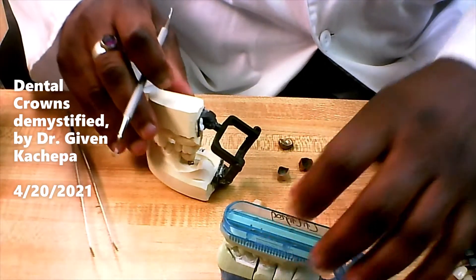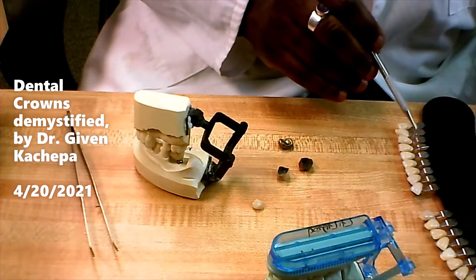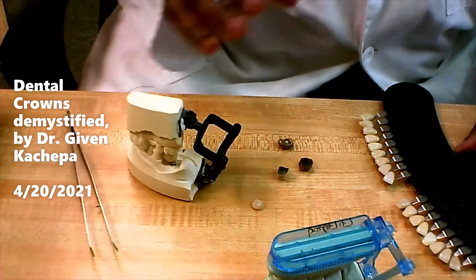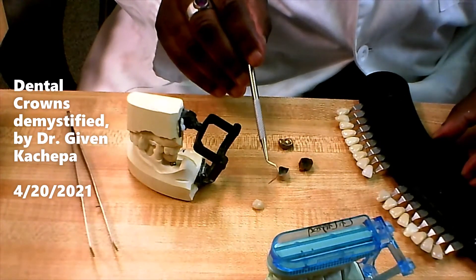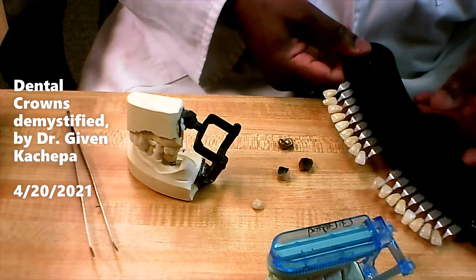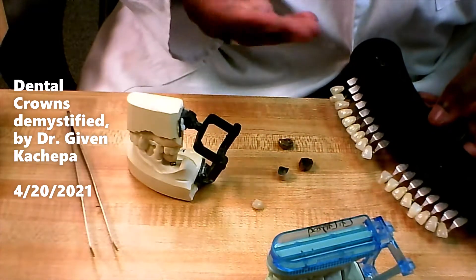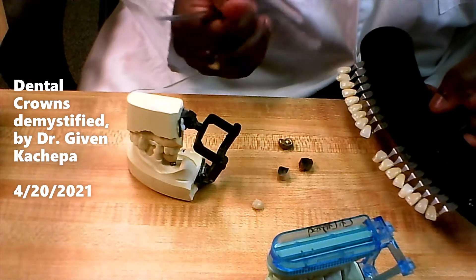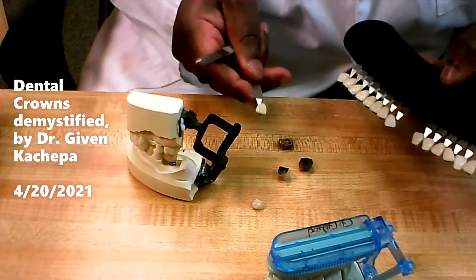Before you send the case out to the lab, you're going to use a shade guide. This is a shade guide that tells you what color of crown to pick to match the patient's teeth. If you're making a tooth to match a neighboring tooth, you come to this shade guide and pick the best match, because if it's in the front teeth the patient is not going to be happy if the teeth look different.